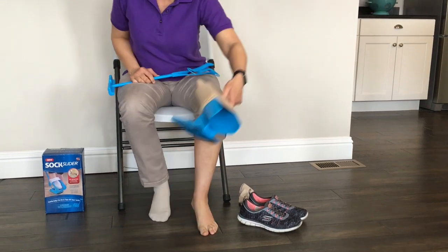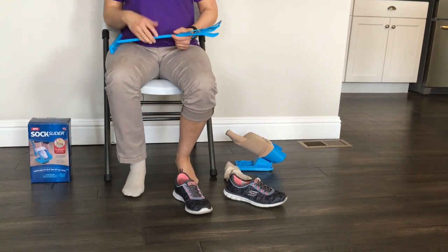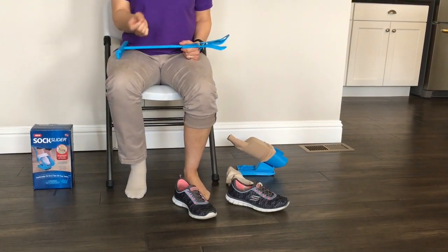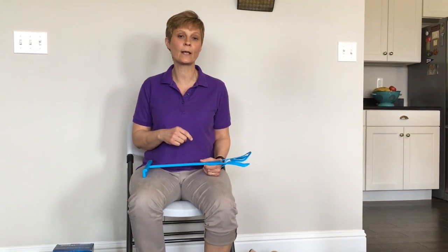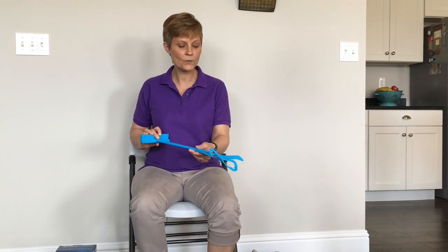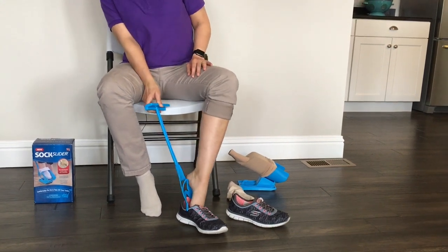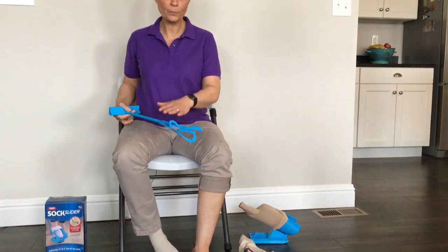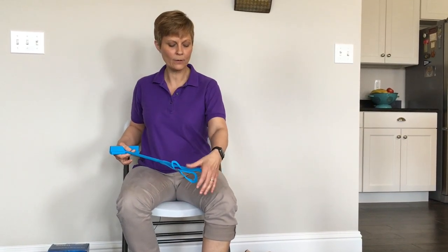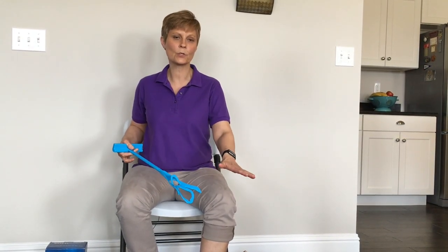Now the other advertisement for the sock slider is that you can use this piece as a shoe horn. I have my shoes here — they are slip-on shoes, not tie-up shoes. If you have trouble bending over, you're going to have trouble tying your shoes, so you may be using elastic shoe strings or something like that. If you have a question about those, we do have a video on elastic shoe strings and shoe horns, so take a look at that. To use this as a shoe horn, you can take this piece, put it in the back of your shoe, hold the back of your shoe, and kind of slide your foot in. This piece is not super slick — it catches a little bit on my heel when I push my heel into my shoe. Not terrible, but it's not as smooth as just a regular shoe horn.